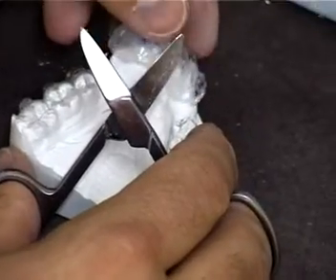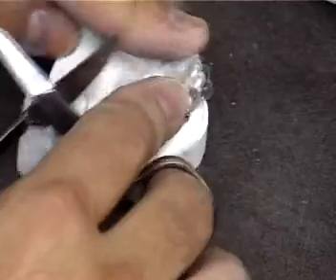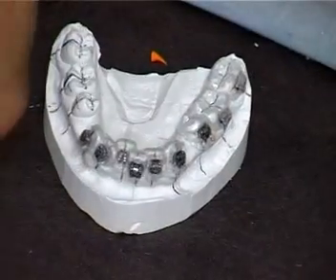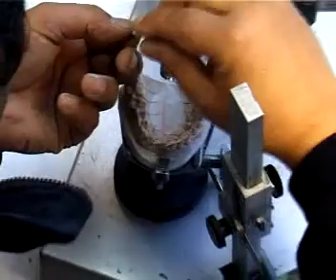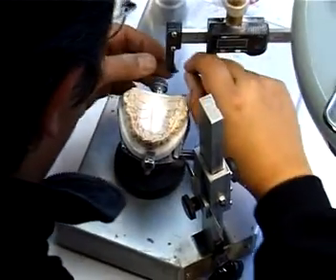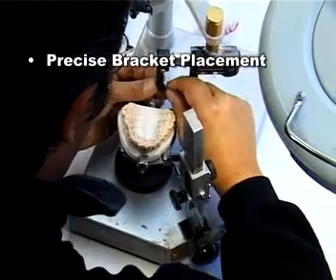Transfer trays for the clinical indirect bonding procedure are then fabricated on the malocluded model. Patient models can be viewed in all three dimensions to facilitate precise bracket placement.